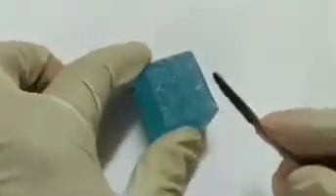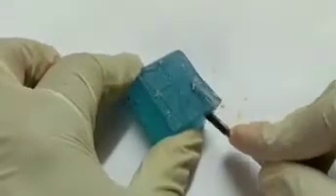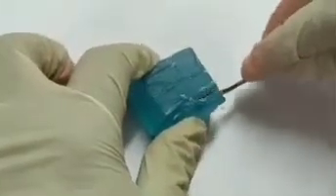After drawing the buccal and lingual outlines, we can cut off the excess wax beyond the outlines, from the buccal surface to the lingual surface, and from the lingual surface to the buccal surface.